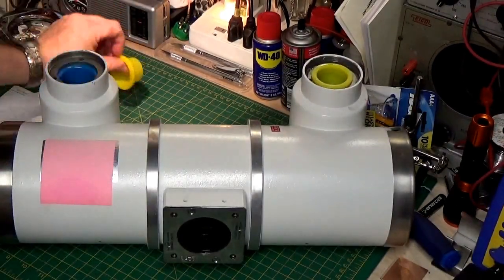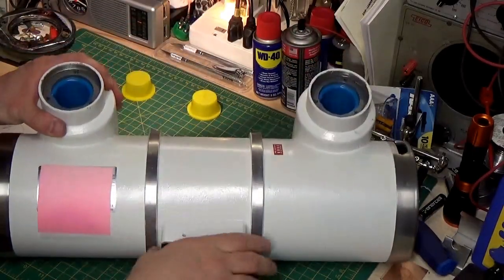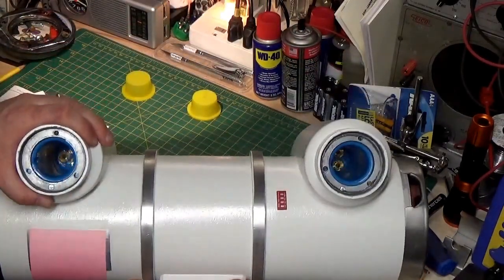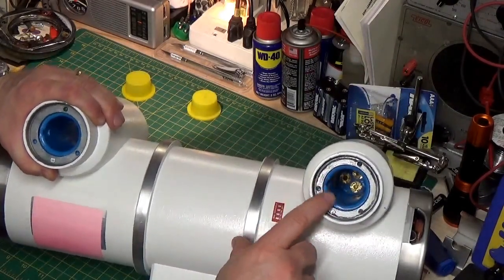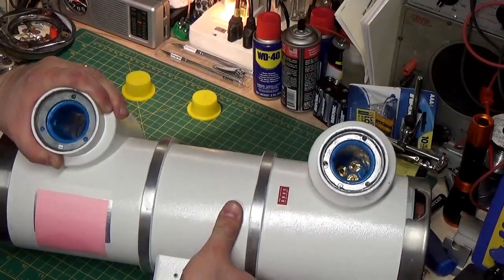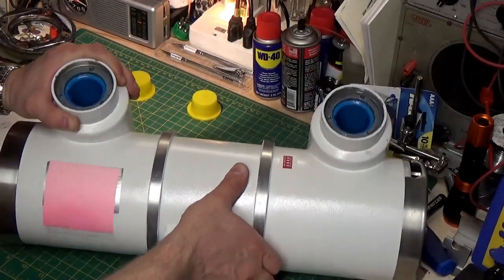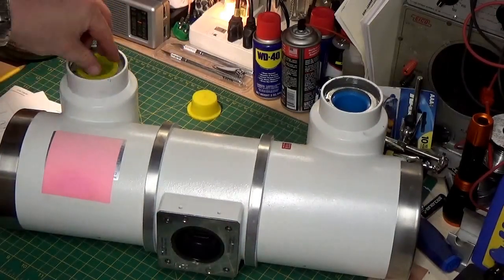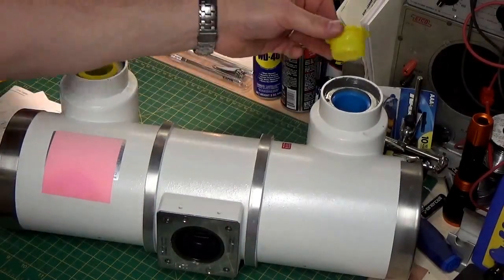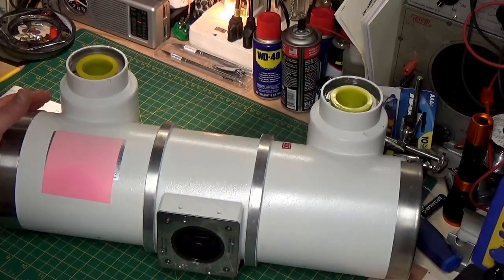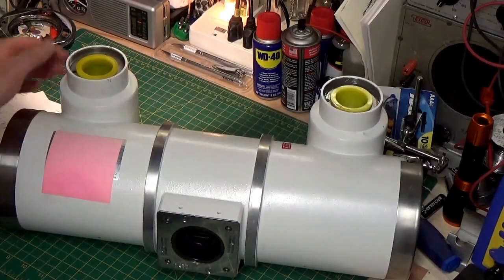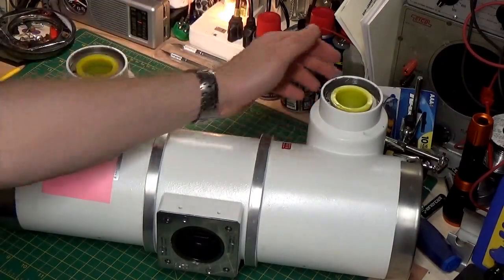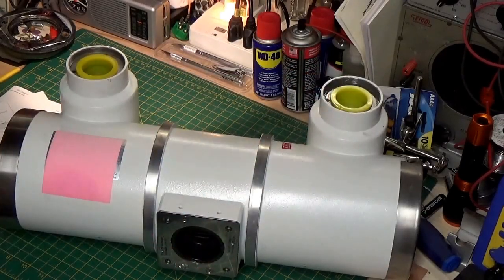Up here, you have your two high tension wells. And if you look inside here, you'll see three little pin receptacles. They're way down in there, about six inches down. And what those do is, if you notice, it's kind of greasy down in there. We actually use a special dielectric paste, and it basically insulates that high voltage from getting out of the pins and shorting up to ground. The whole tube is grounded.